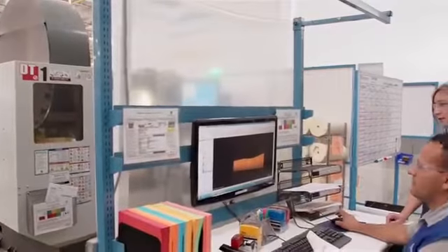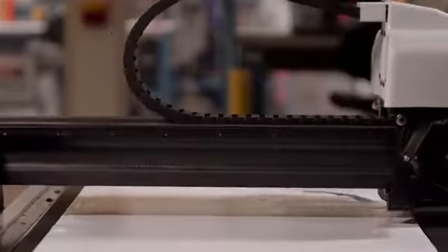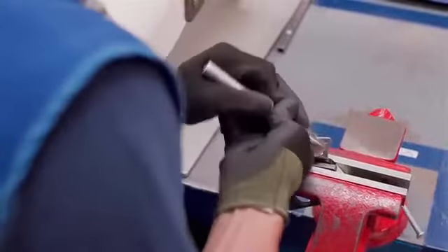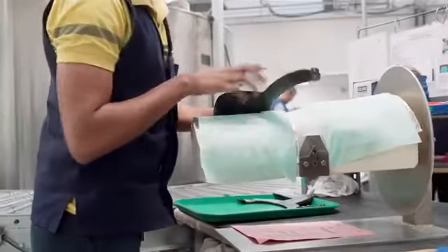While the exact manufacturing process varies a bit by product, the end result is always the same — a truly custom brace. In the case of CTI, the raw carbon fiber is precisely cut using CNC technology. The hinge arms are then fine-tuned, and the carbon fiber is hand-shaped to fit the 3D leg model.